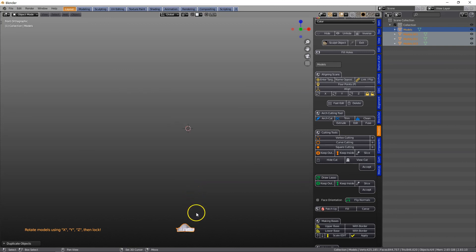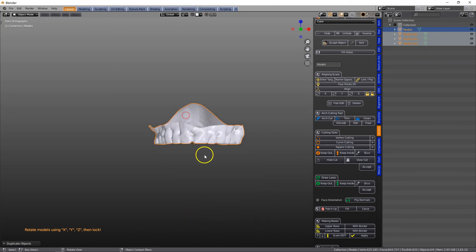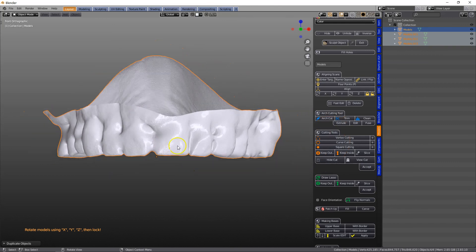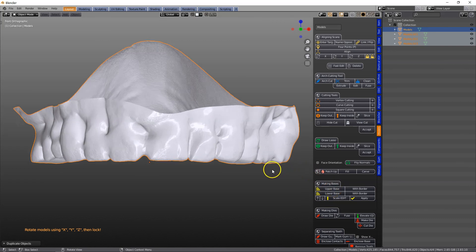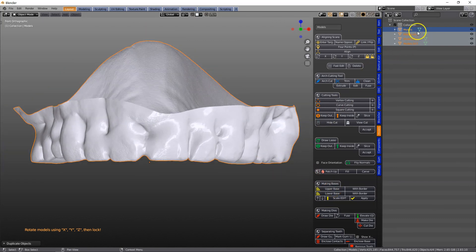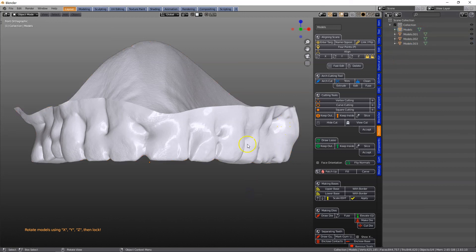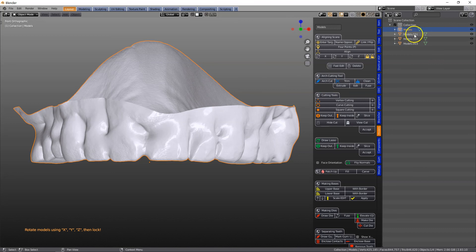Let's see where this model is. So that's in the center, and we're going to extrude this into a base, upper base. But before I do that, notice, I've noticed this is why it's good to have your outliner window open. When this was cut, we've got a few objects in it.